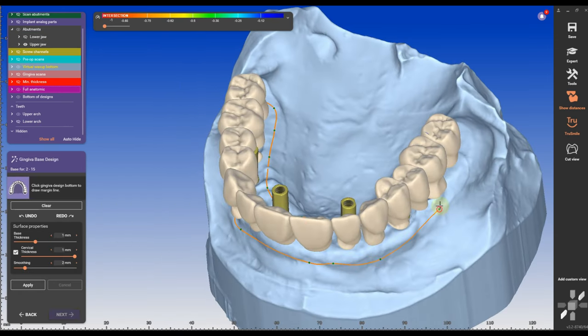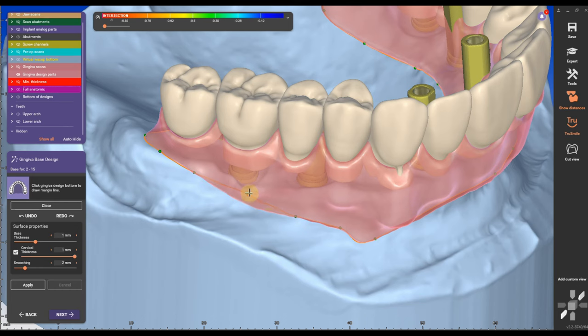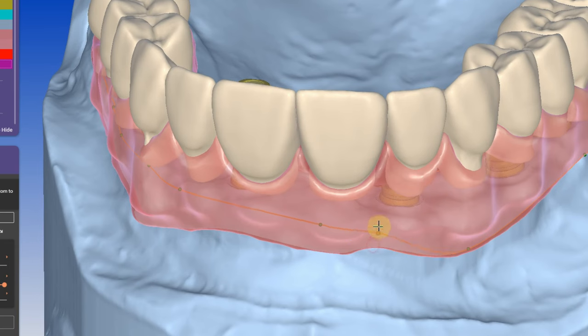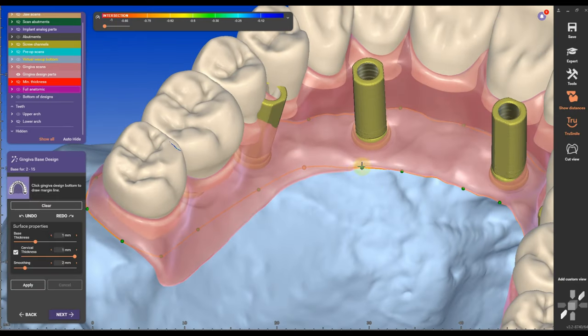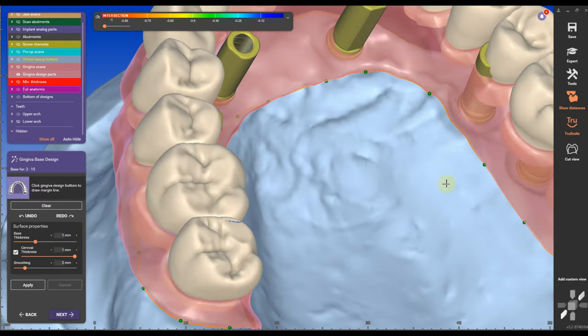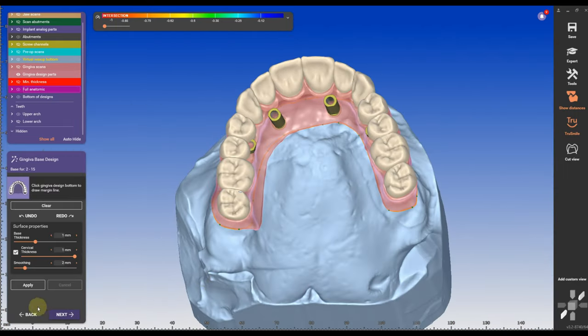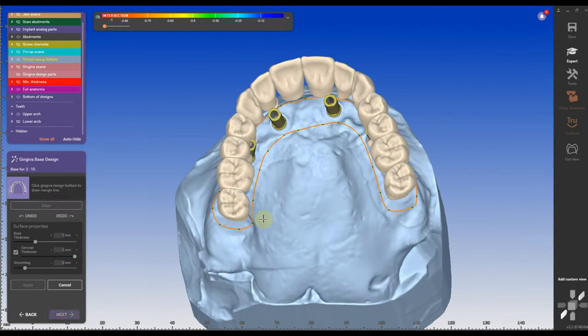The gingival design is a straightforward design that we know from all of our videos, from all our all-on-four designs. I'm going to bring it up so I don't create a concave surface. And I'm going to move into the gingival free-form.